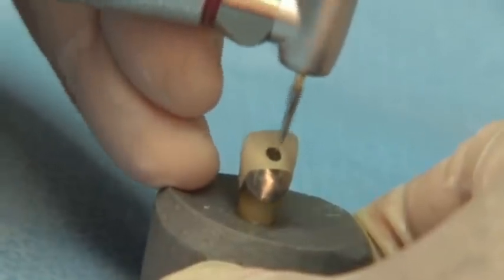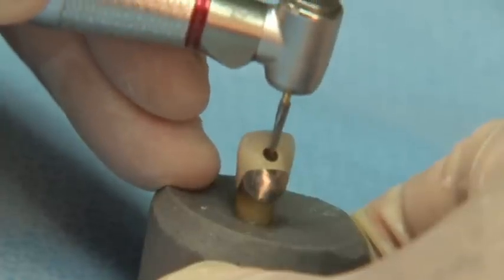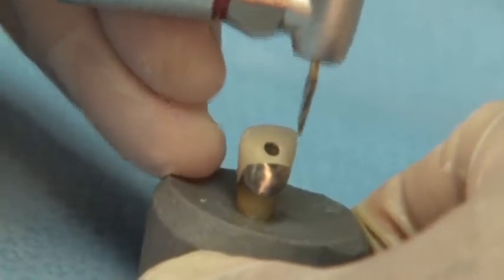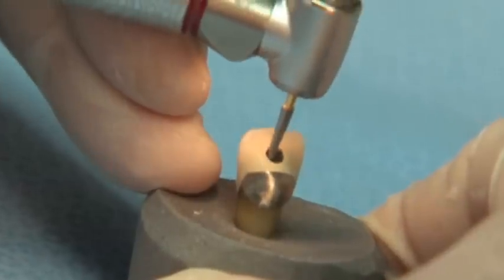EndoSafe end instruments are available in two sizes, 1.4 mm and 1.8 mm, and are designed for lateral endodontic access enlargement without the risk of penetrating the pulp chamber floor.